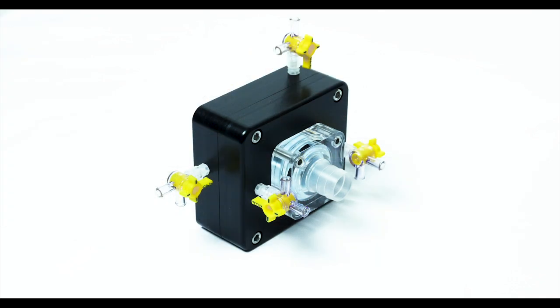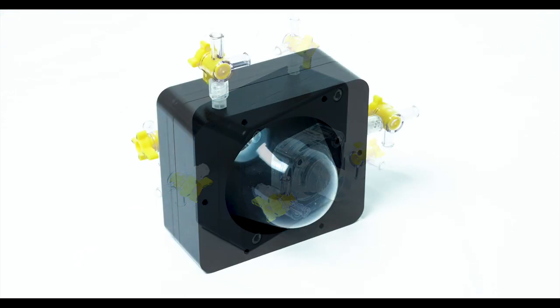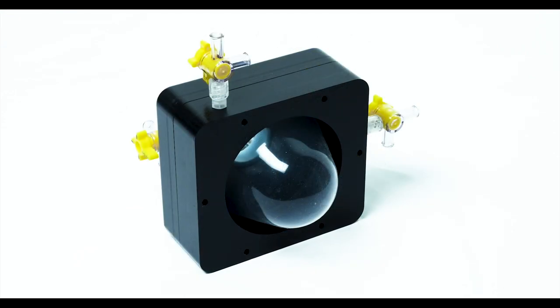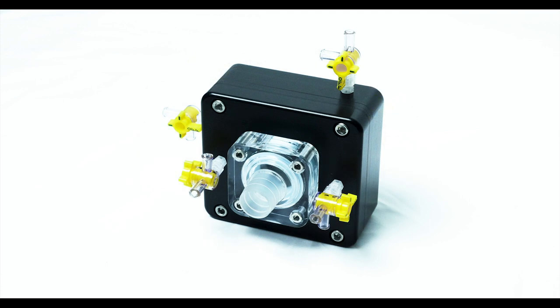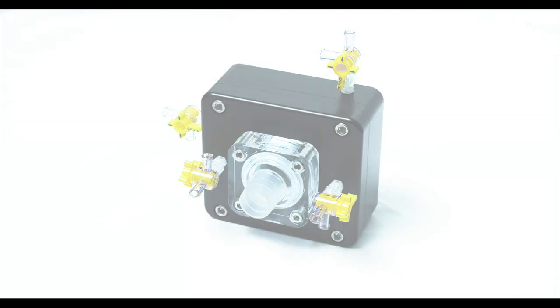A single outlet pump head can be used when only the forward and reverse flow of the pump is required. This accessory consists of a silicone ventricle and one outlet barb. No valves are used in the single outlet pump head.